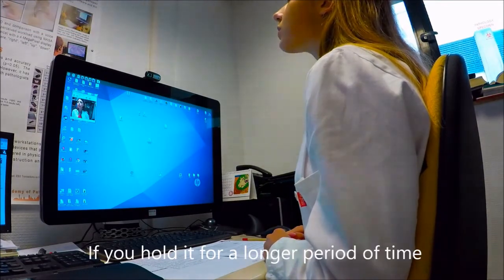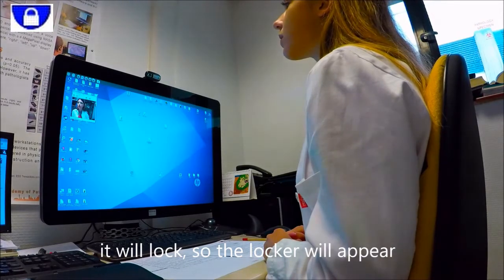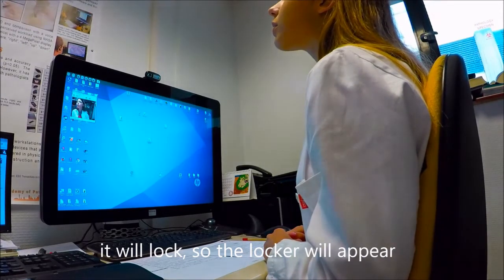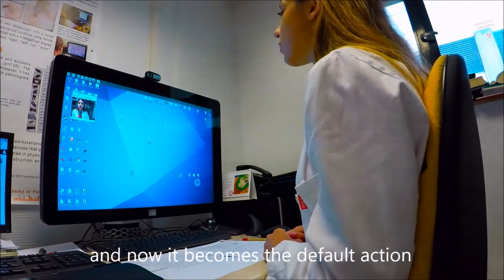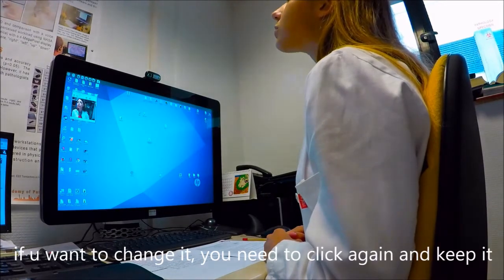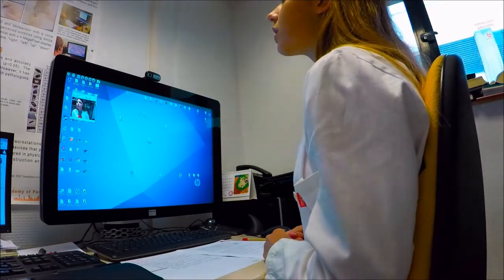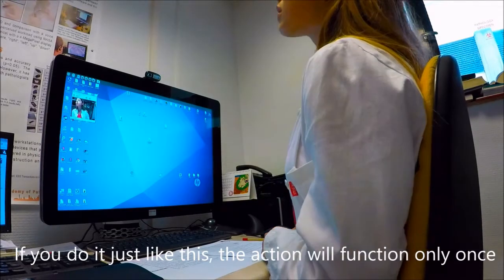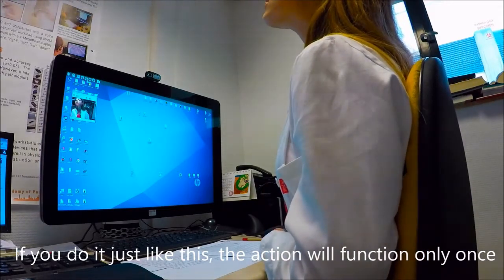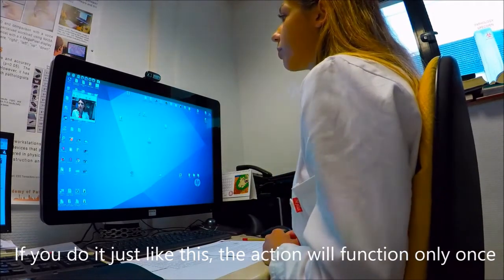If you hold it for a longer period of time, it will lock. So the lock will appear here, and now this becomes the default action. And if you want to change it, you need to click again and keep it. If you just click like this, the action will function only once.